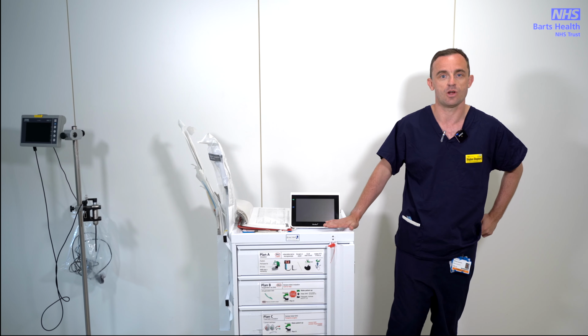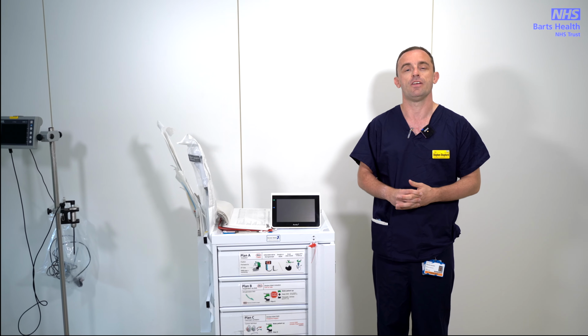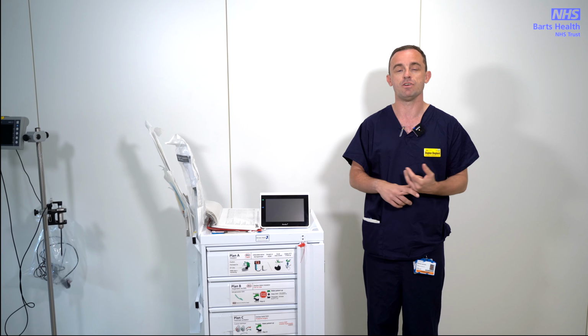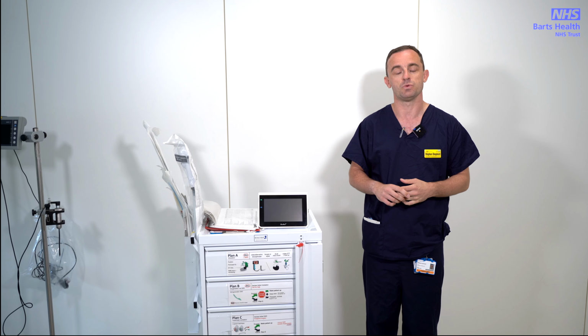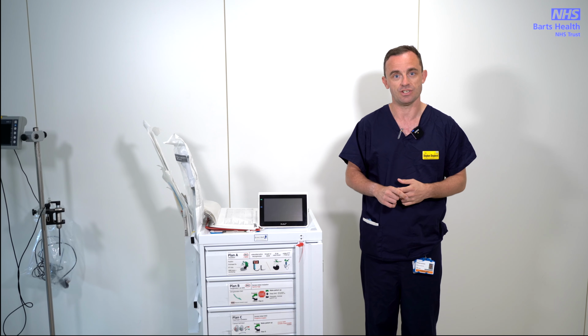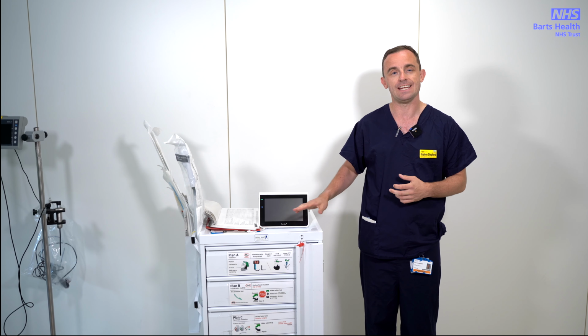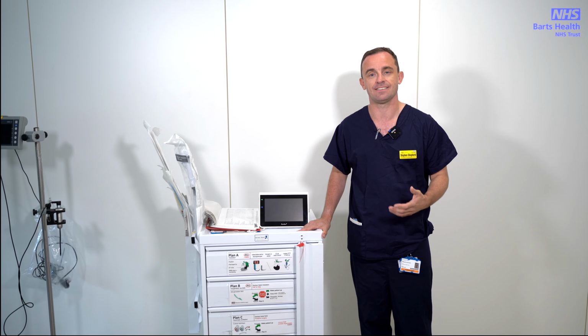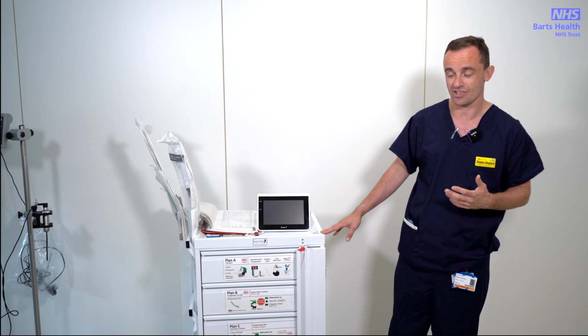So the first thing to say is hopefully those of you who are anaesthetists will be familiar with the concept of the difficult airway trolley, but there are units on every one of the intensive cares. There are 2 within theatre, and there is 1 in the catheter lab, which is based in lab 10, if you need it. The layout follows the DAS algorithm for unanticipated difficulties during tracheal intubation.